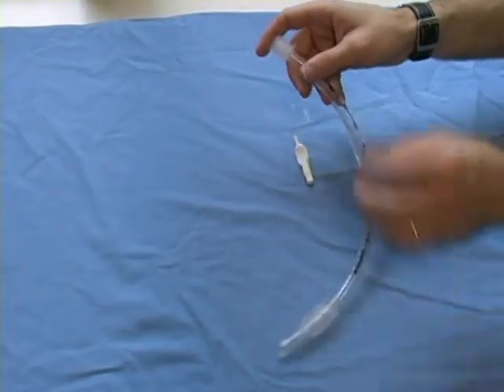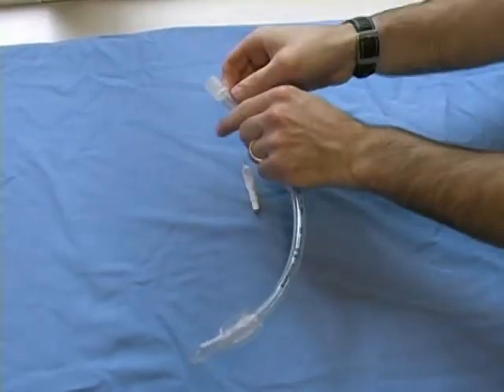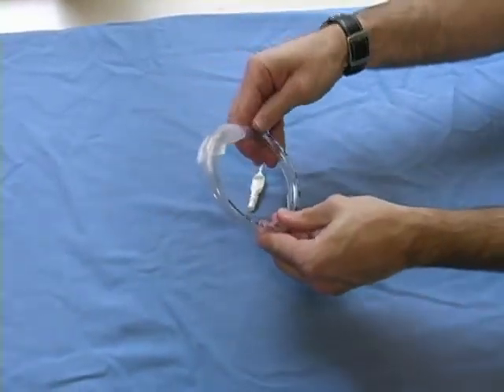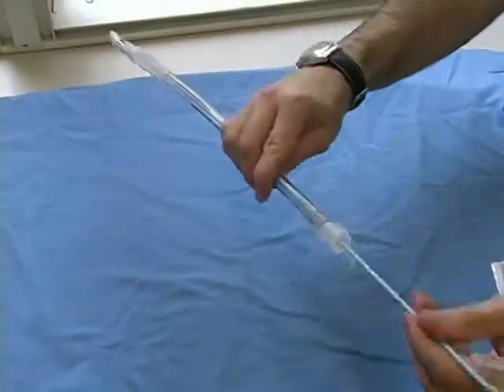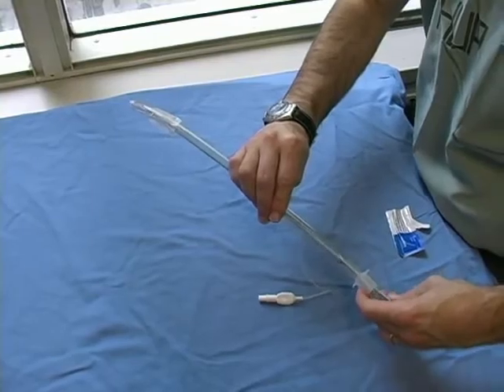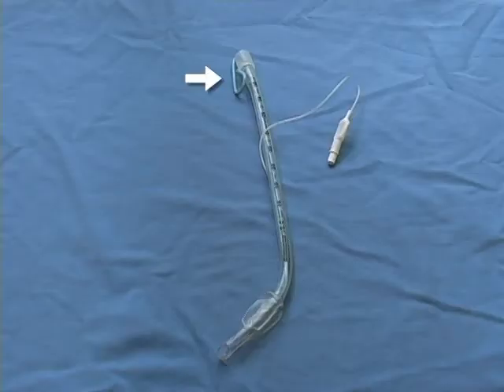To prepare your endotracheal tube for intubation, secure the connector in place. If you do not plan to use a stylet, you can bend the tube in the form of a circle. Although curving the tube is not mandatory, some practitioners recommend this step because it can facilitate tube placement through the vocal cords. If you choose to use a stylet, it should be lubricated with surgical lube and placed inside the endotracheal tube. The stylet should not extend past the Murphy eye hole of the endotracheal tube. Fold the stylet over the edge of the tube to fix it in place, then bend the tube at a 35 degree angle in the shape of a hockey stick.